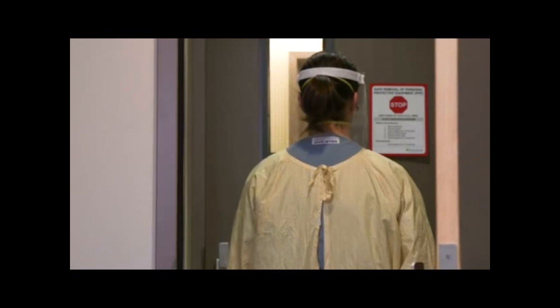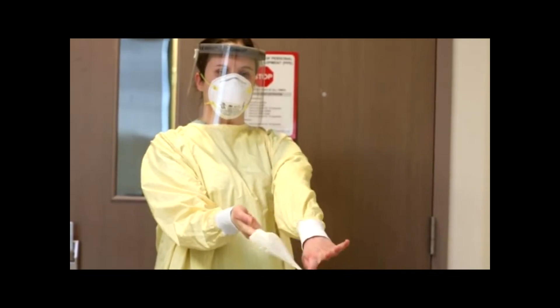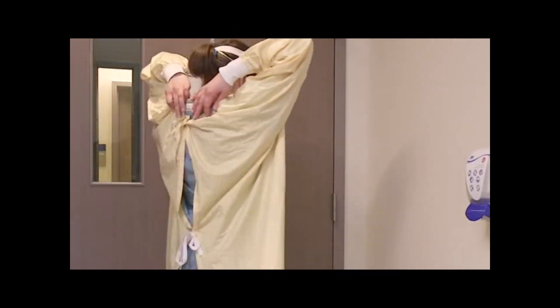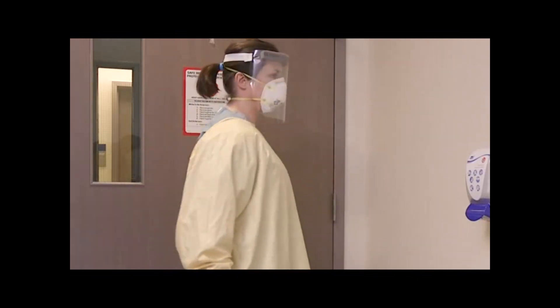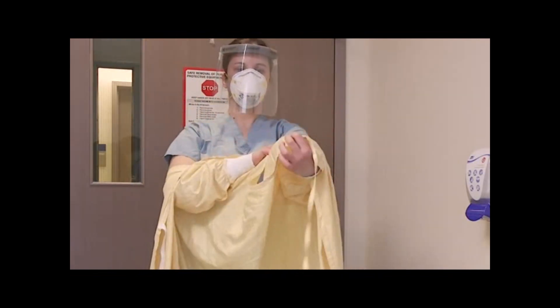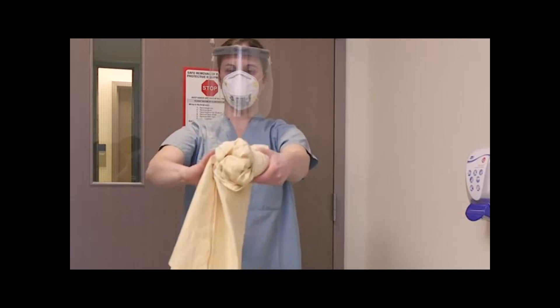Step into the anteroom and ensure the door is closed. Remove gloves using the glove-to-glove and skin-to-skin technique and place in the garbage. Perform hand hygiene if there is any concern your hands were contaminated. Untie the gown around the waist and neck. Grab the straps from the back of the neck, slowly pull the gown forward touching only the inside, and be careful not to let it touch your clothes. Roll the gown into a ball and place reusable gowns in the laundry hamper or dispose of disposable gowns in the garbage.